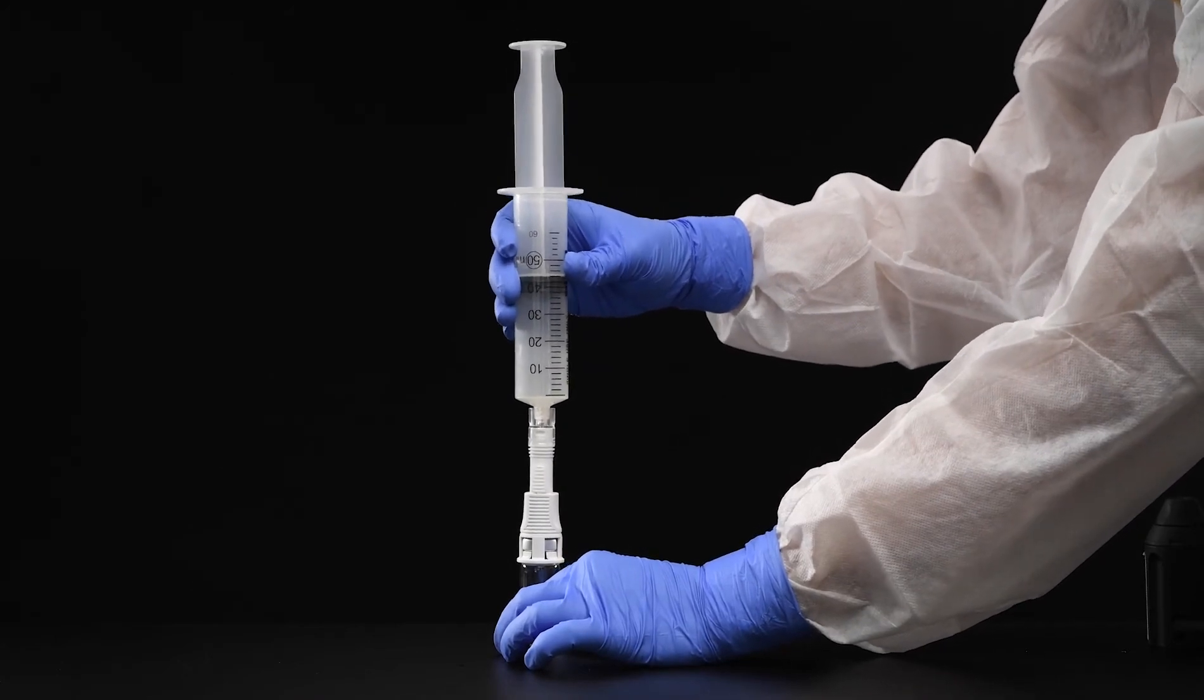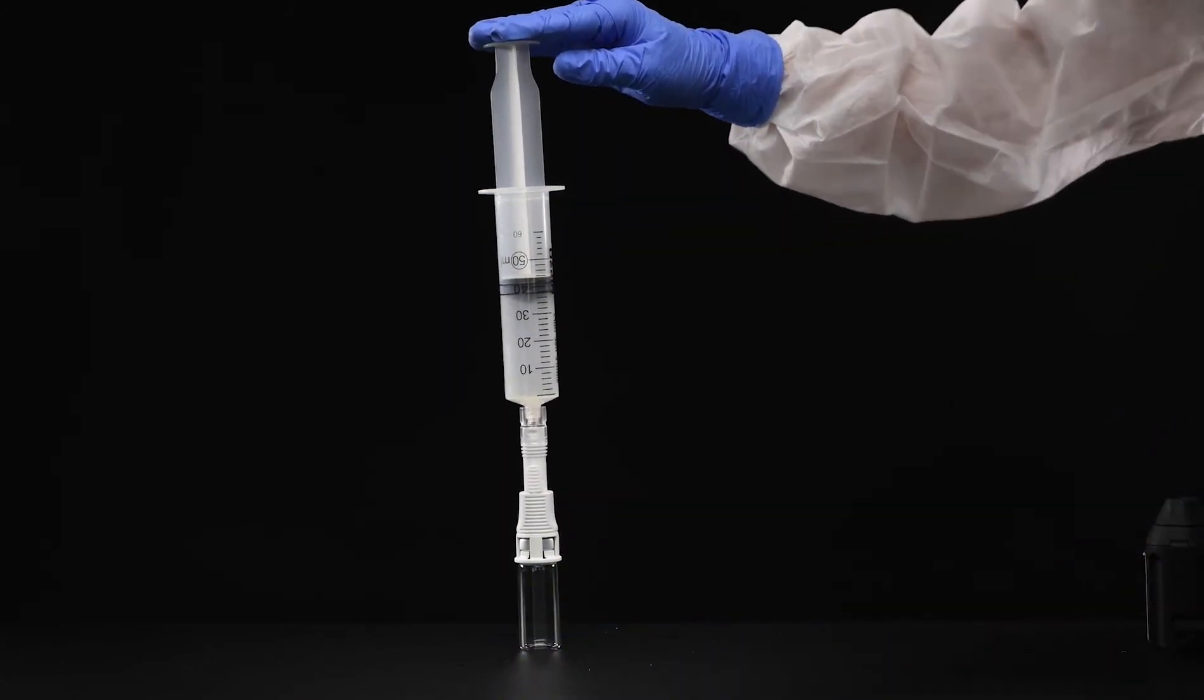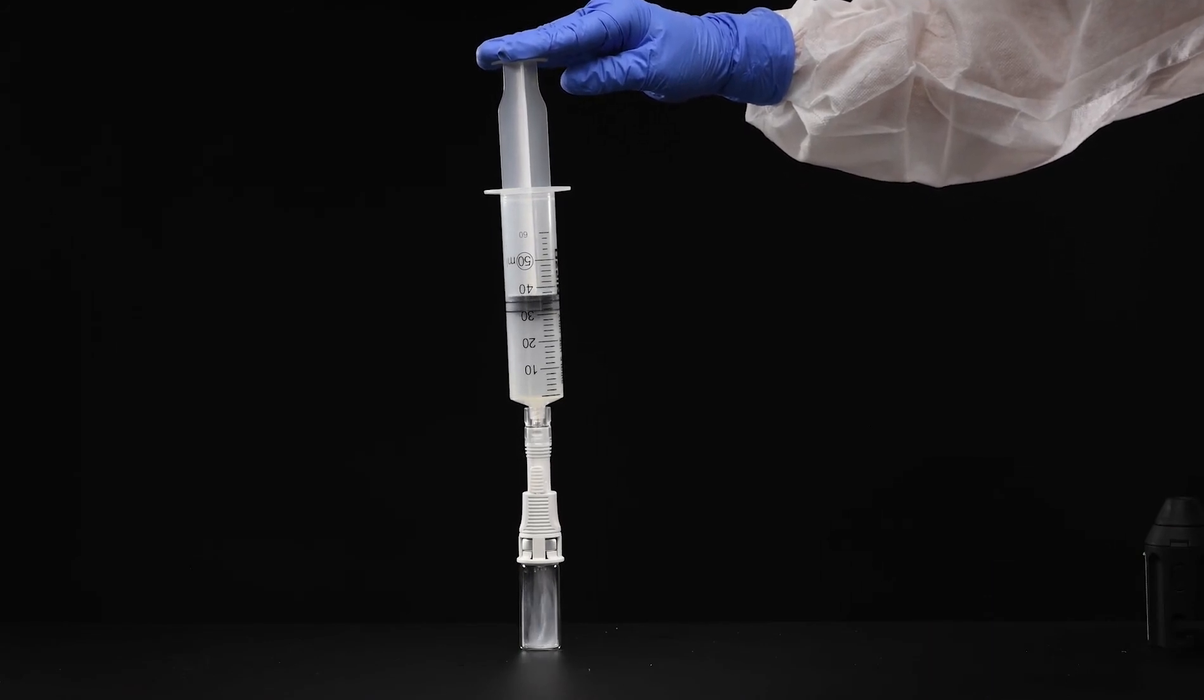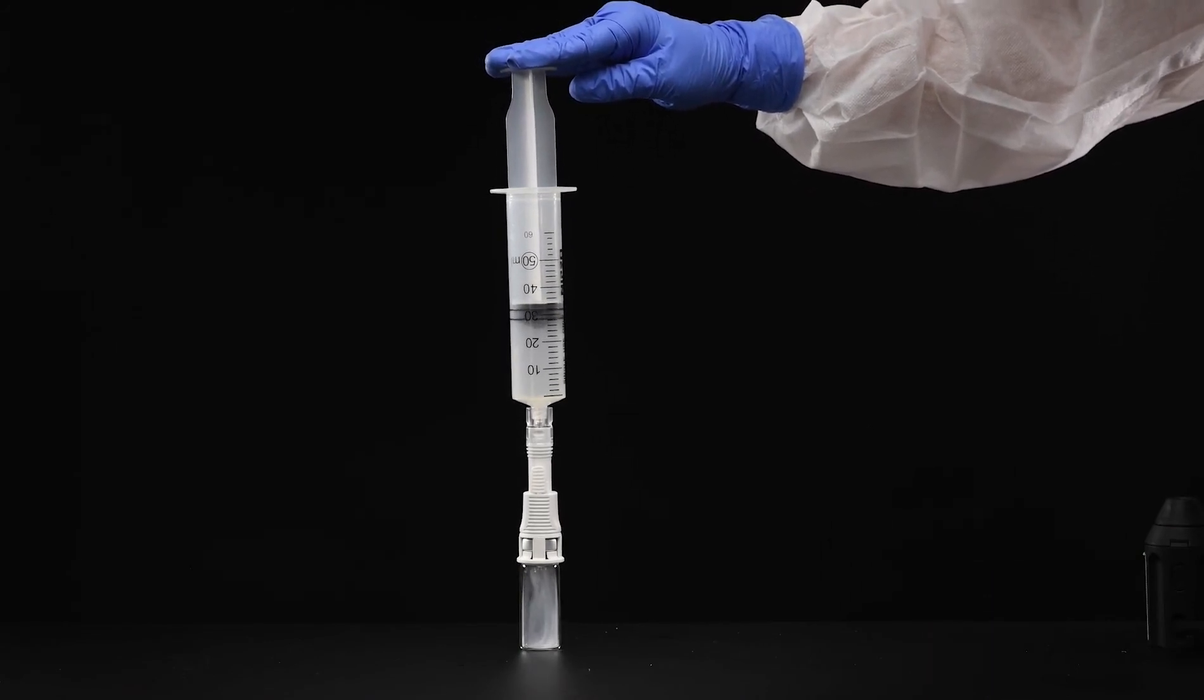Connect the syringe adapter to the vial adapter. Inject the smoke into the vial. No smoke escapes the vial adapter.